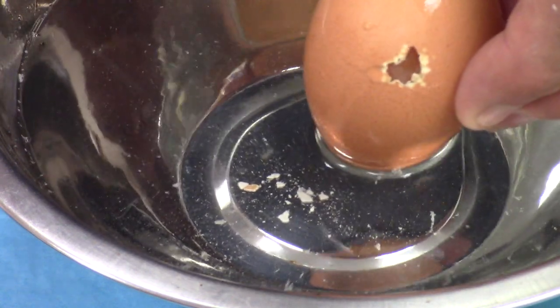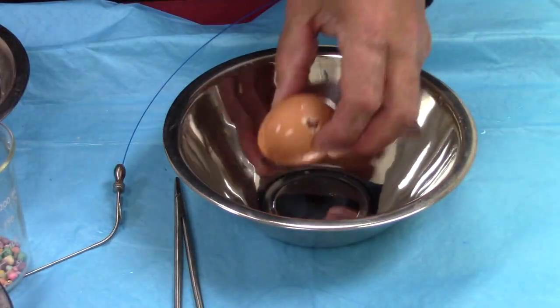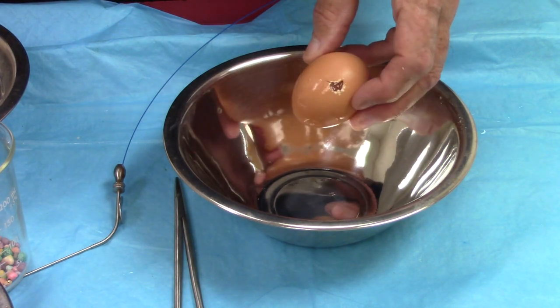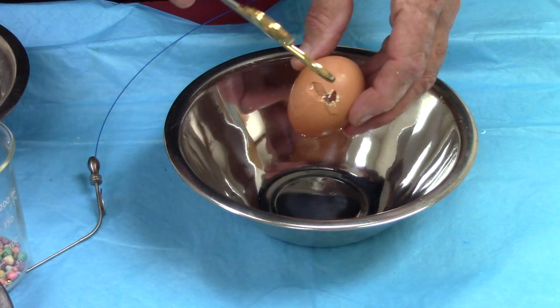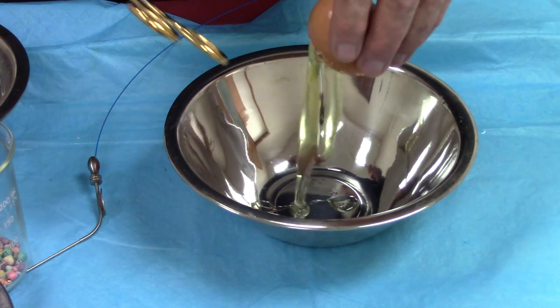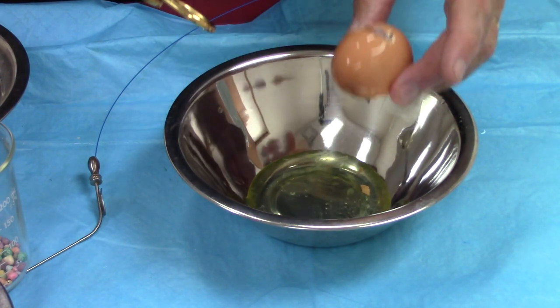Let's switch over to the piece of chicken and compare the two effects — high energy versus low energy. I almost forgot: let me show you I was not cheating. This is not a boiled egg; this is actually a raw egg. Let's break that open. You can see that it is a raw egg and we were able to do that without bursting the membrane itself.